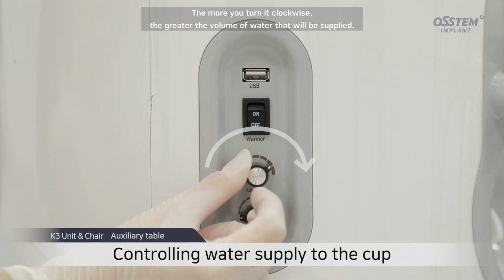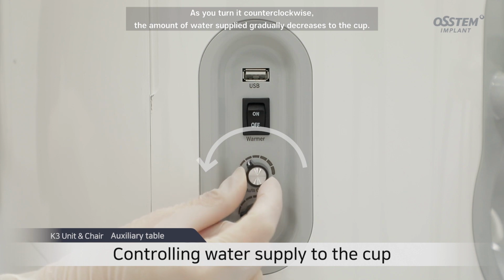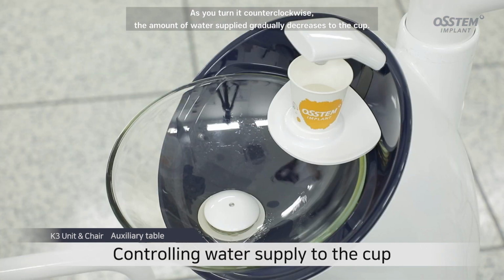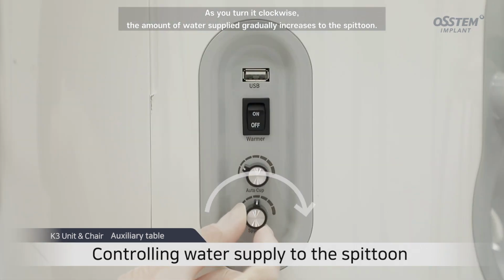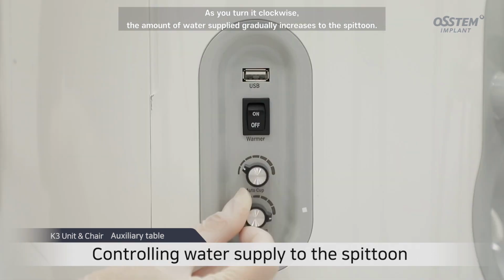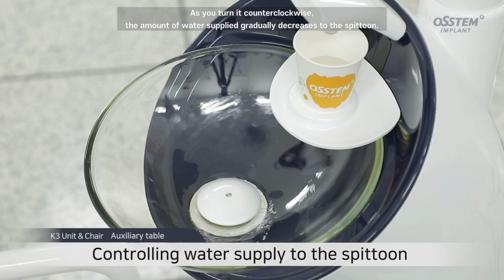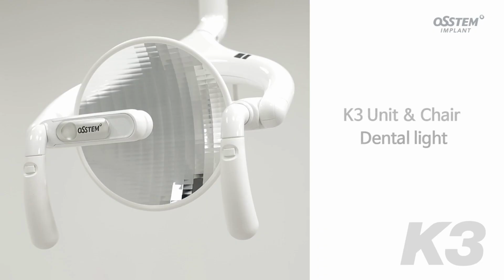You can control the amount of water being supplied with the cup and spittoon water supply control knobs. The more you turn it clockwise, the greater the volume of water that will be supplied. As you turn it counterclockwise, the amount of water supplied gradually decreases to the cup. As you turn it clockwise, the amount of water supplied gradually increases to the spittoon. As you turn it counterclockwise, the amount of water supplied gradually decreases to the spittoon.